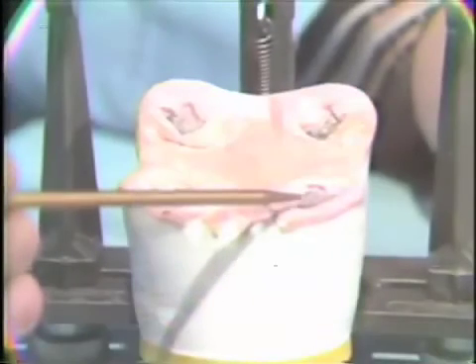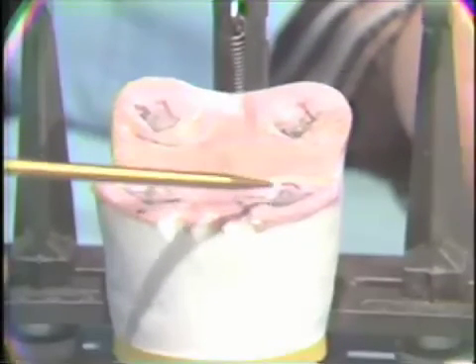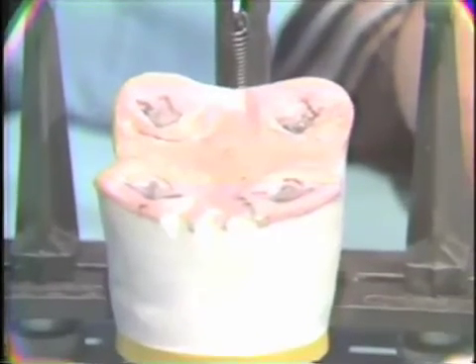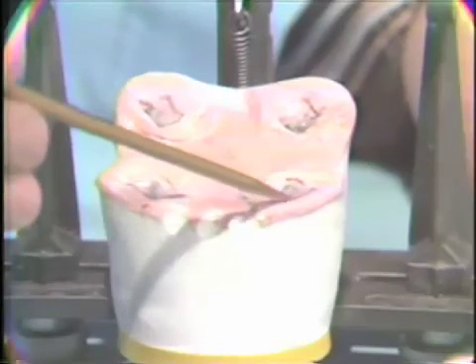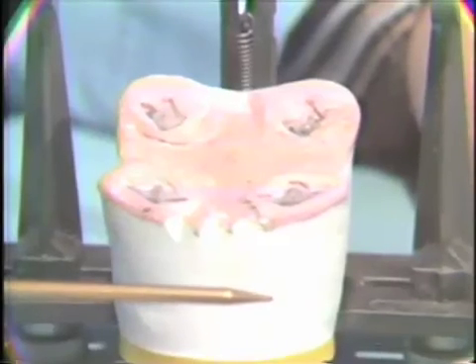Now, in review of some of the potential problems or shortcomings of this system, first of all, while taking the stereographic recordings, you're pretty much working blind. You lack any discriminatory potential, as with the pantograph. You can't visualize what you're doing. So this is a potential problem. Also, with the inexperienced operator, it's very difficult to capture the total true border movements. And again, this is especially true of the Bennett movement. It's difficult to capture the total Bennett movement.